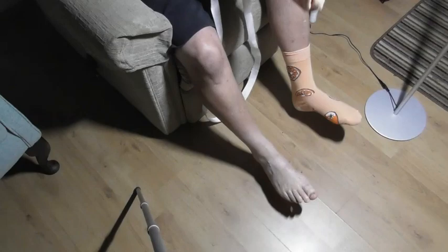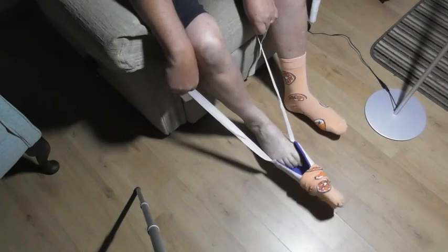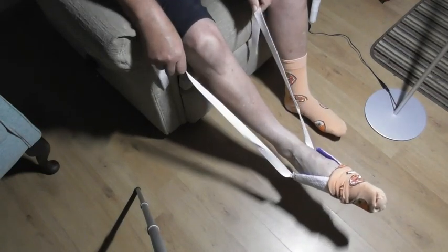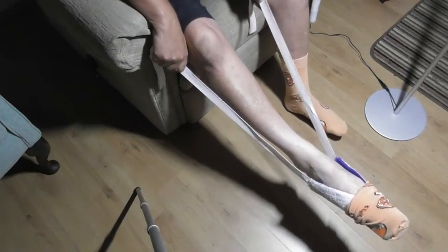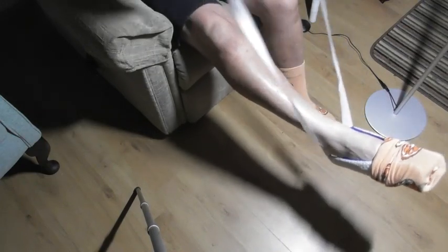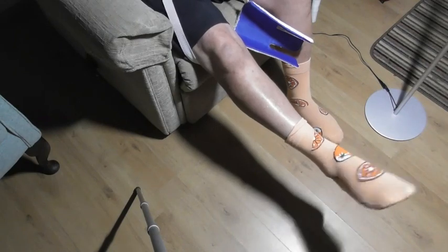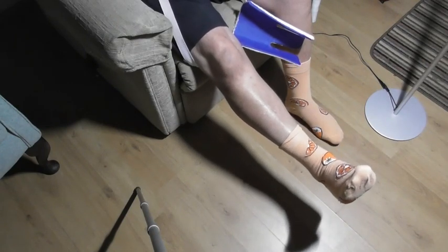Make sure you don't trip over the tripod. Then put that up there, put your clean foot in, push the foot to the bottom, then just use the two straps to pull that towards you. And then — voila! You can see that. It's fully on my foot. My foot's now operational. And here's one I prepared earlier.